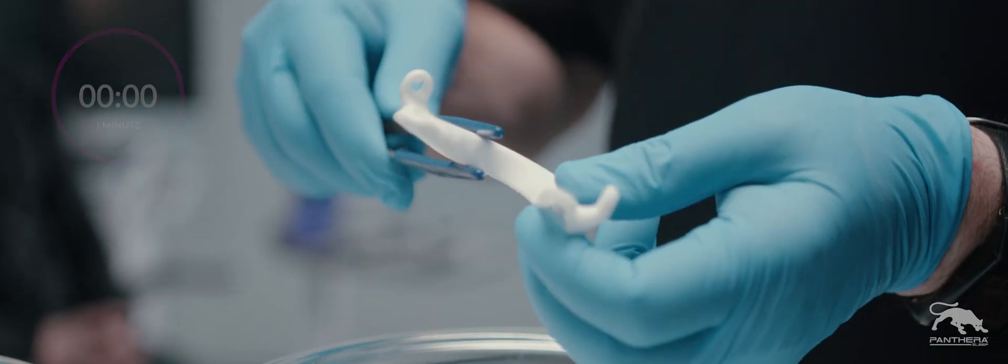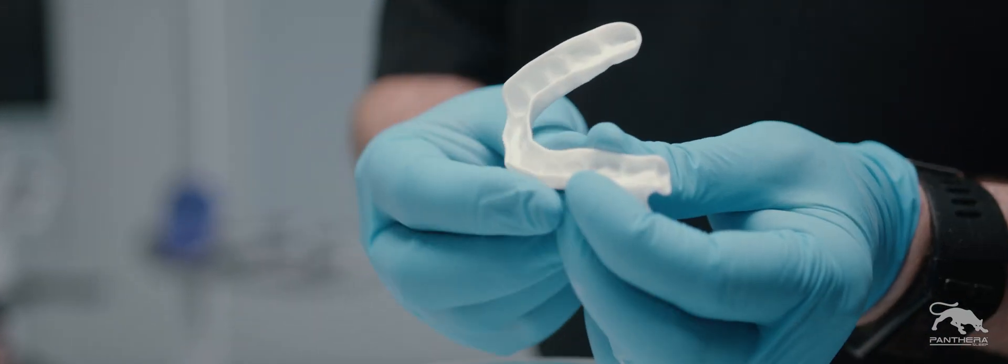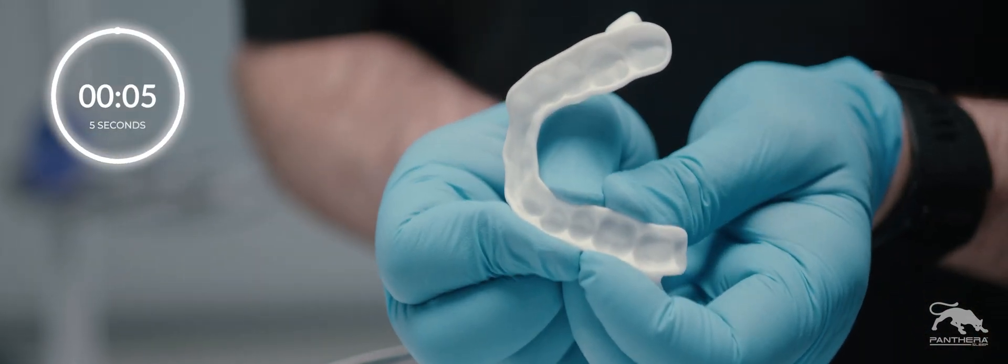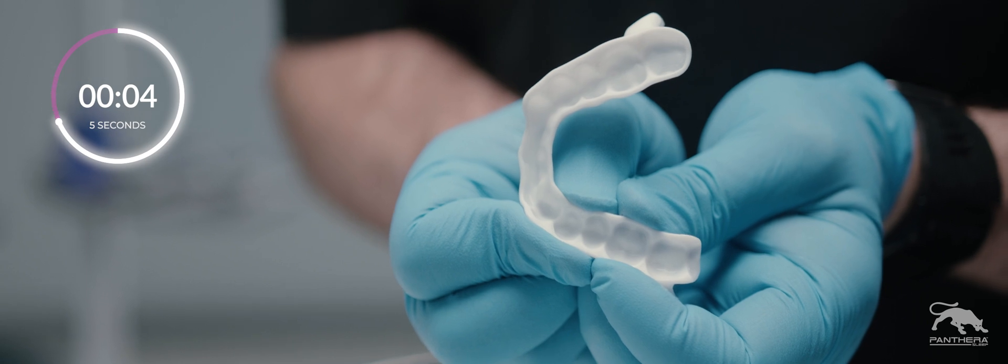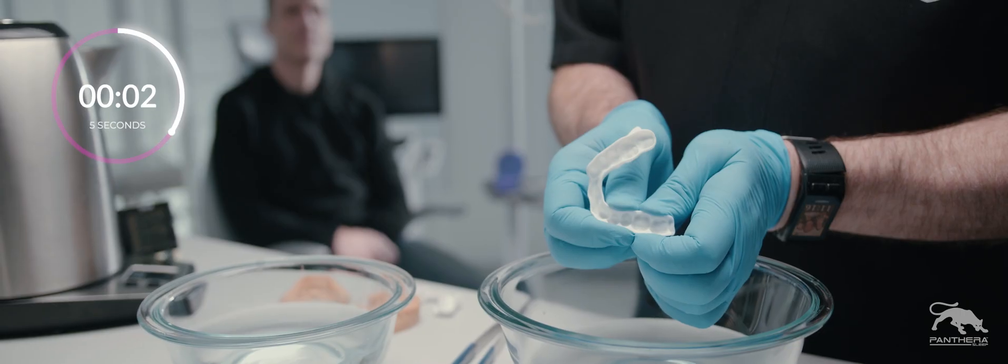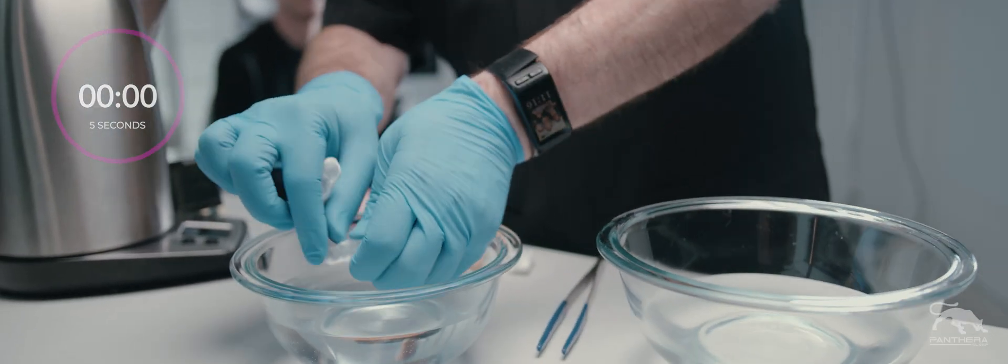For low retention, apply light pressure with your fingers to the areas requiring tightening. Hold for about 5 seconds, then cool under cold water while still maintaining pressure.